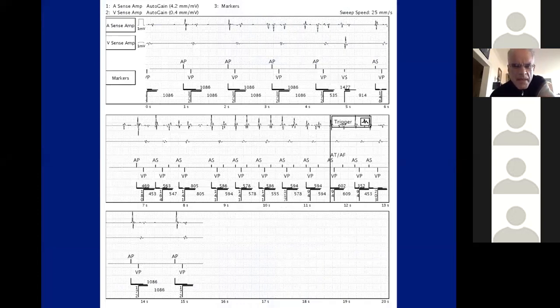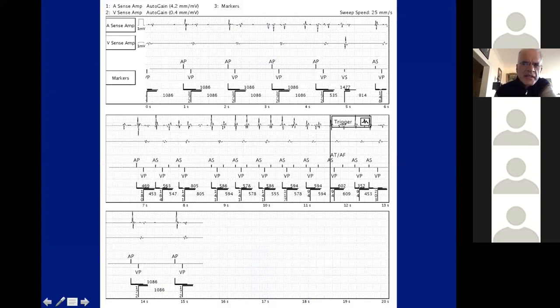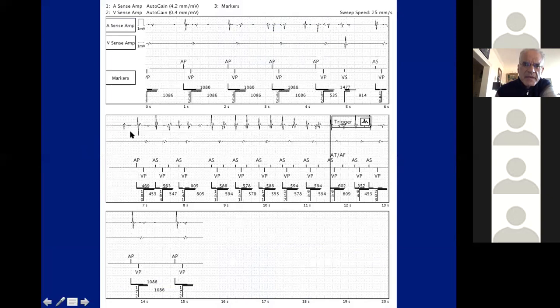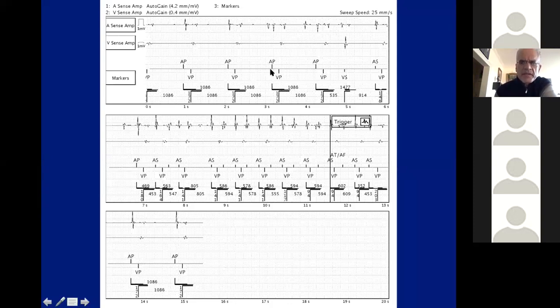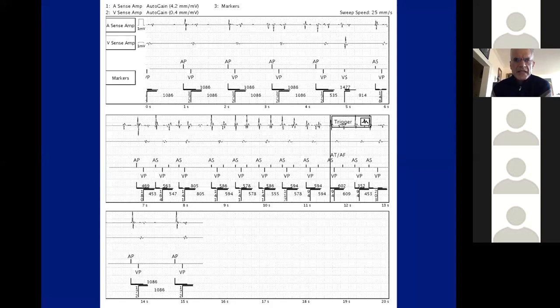Here is something that frequently happens during atrial fibrillation: the electrograms are crisp and the device is recognizing most of them, but then the device appears to be A-pacing. AFib is still going on even though the device is A-pacing — this is an example of undersensing during atrial fibrillation. The device doesn't see it and A-paces because the amplitude is low during AFib, often recording very low amplitude signals.